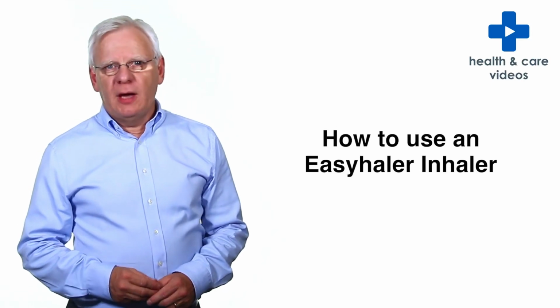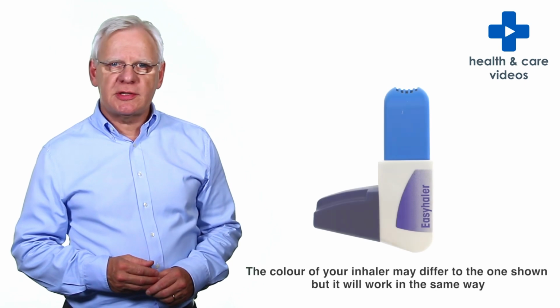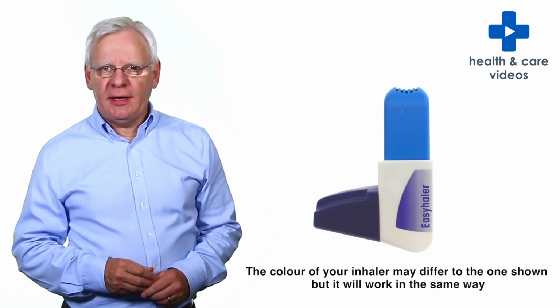Hello. A variety of inhaler devices are available to treat lung conditions. This video will show you how to use your Easyhaler inhaler.